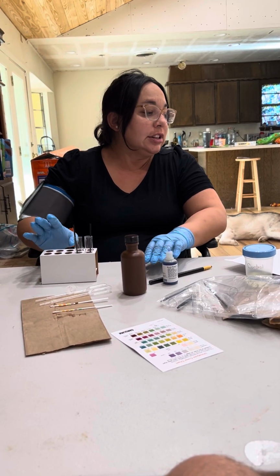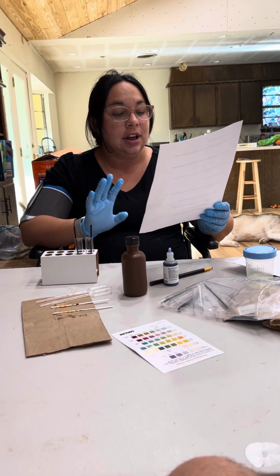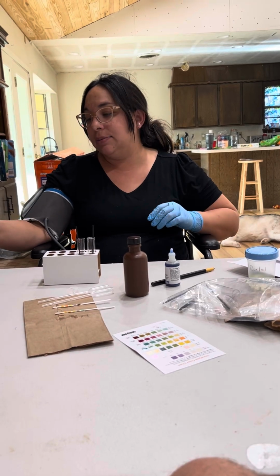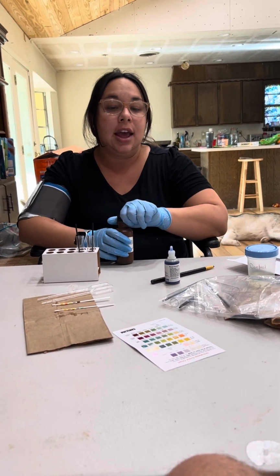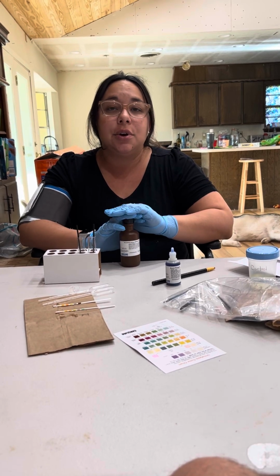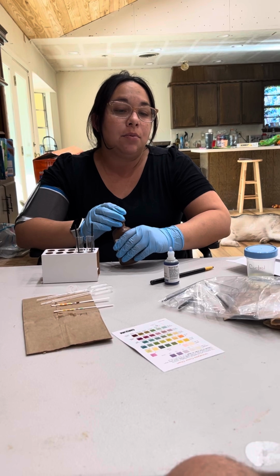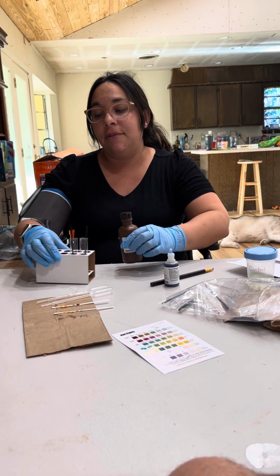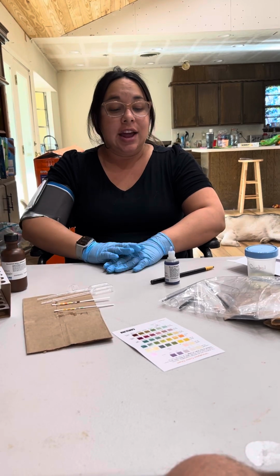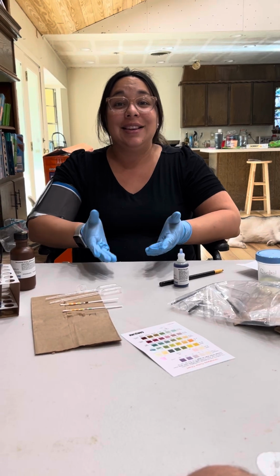As far as this goes, I know that in the data analysis it says a female who has lots of things, but I would say that for this person, the unknown A, most things look normal with the exception of glucose being incredibly high. Glucose is present when you have diabetes, as well as other things. So that is all we have to do. And that's it. Thanks.